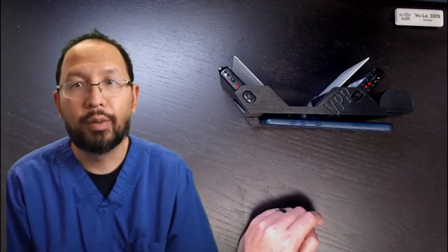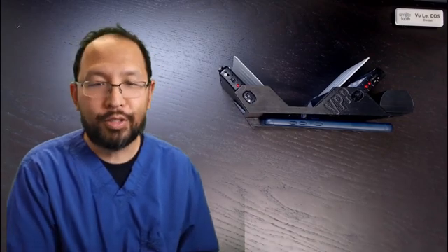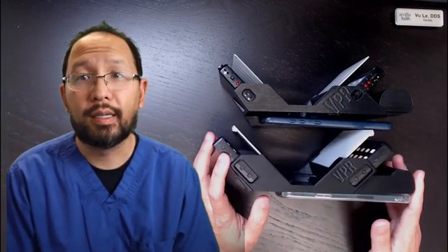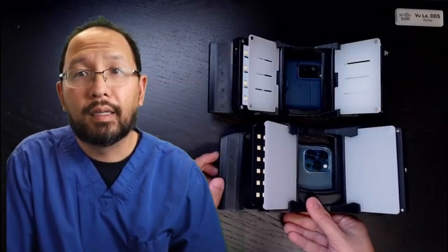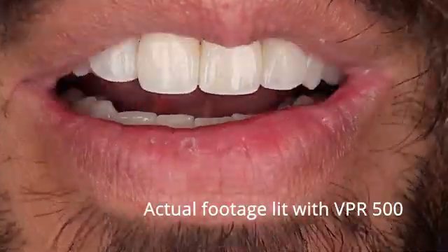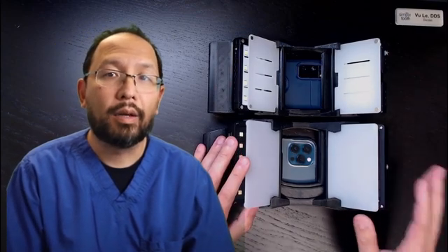So I am happy — I'm stoked — to introduce the VPR 500. As you can see, the VPR 500 is a little bit larger in every direction. It's about an inch taller and wider, and it has significantly bigger diffusion panels as well. Everything's just a breadth bigger.